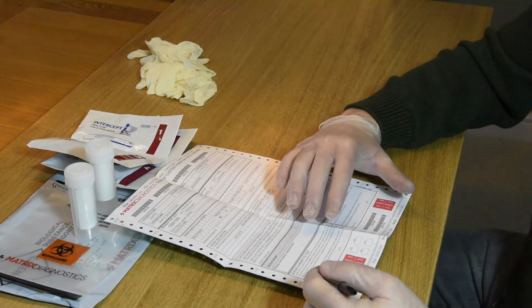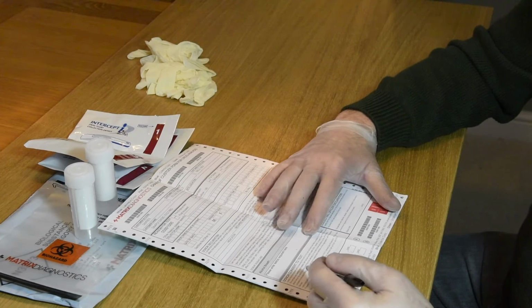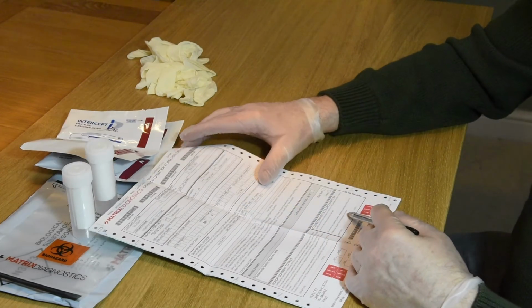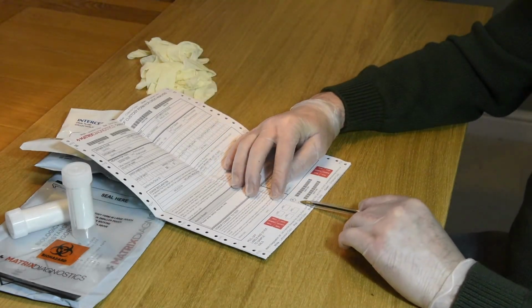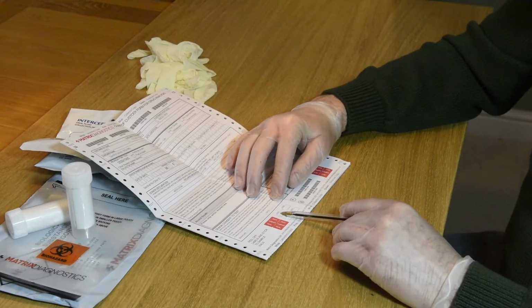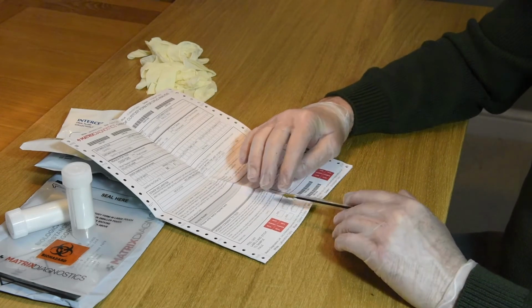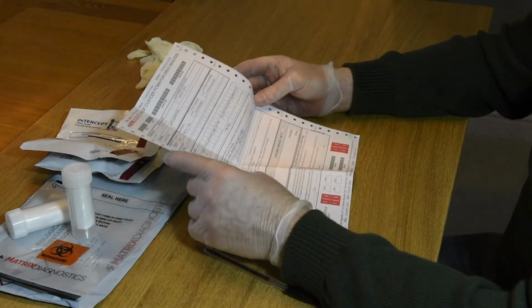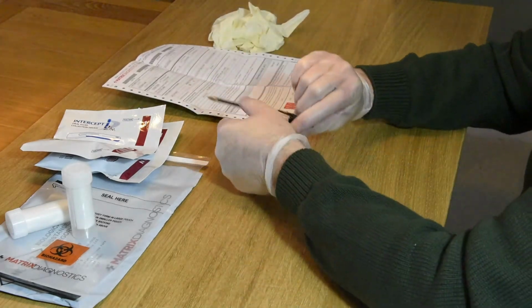Underneath that, they then have to read and sign and date the donor consent to test. And as a collecting officer, you have to sign and date that there. There are also two tamper-proof evidence seals on here, one marked A and one marked B. And they have to initial and date both of those tamper-proof evidence seals. And that will become clearer as we go through running the test. So that's the donor consent form, so we can put that to one side for a minute, and now we can look at the kit itself.